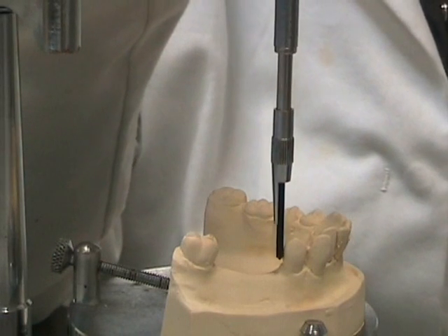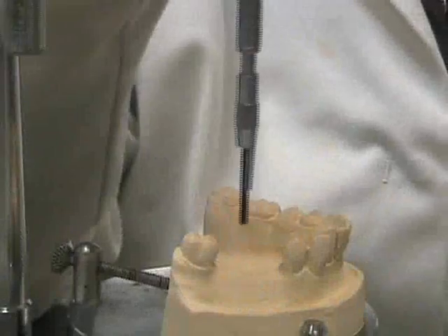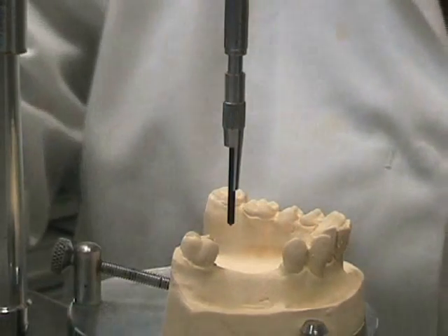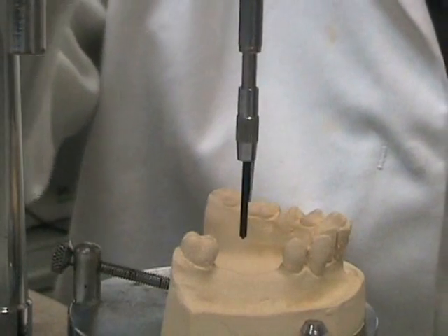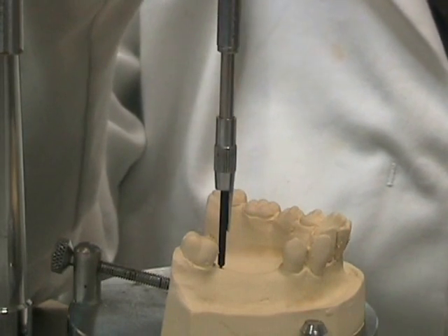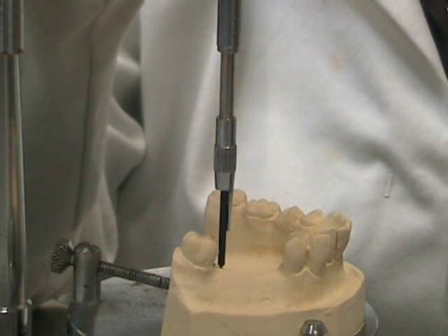By placing the analysing rod up against the teeth, we are able to see if there are any parallel surfaces. As we can note, this tooth here has tilted forwards and when we place the analysing rod up against the tooth, we can see a triangle of light. That triangle of light is known as an undercut.